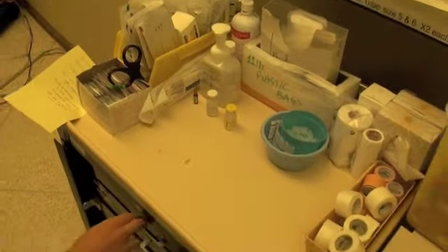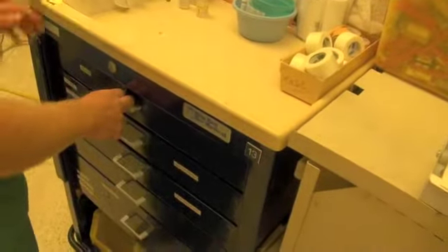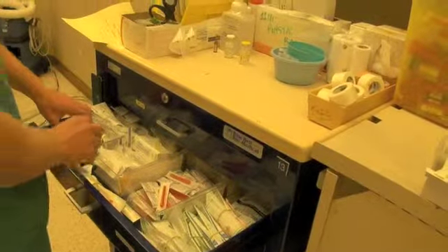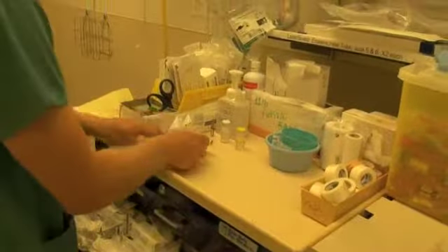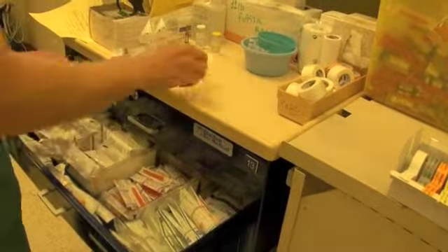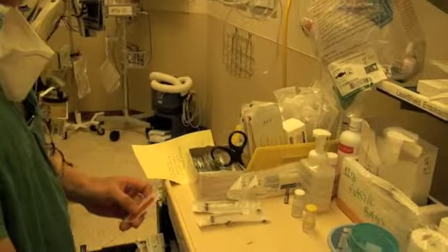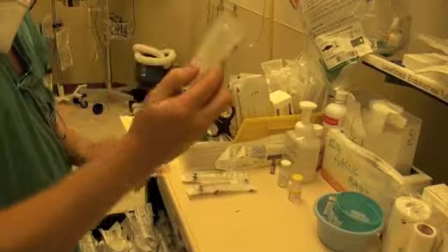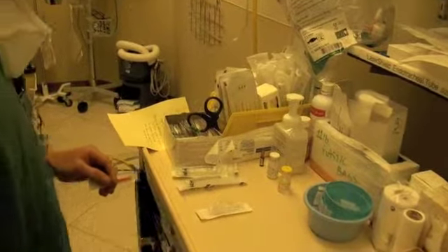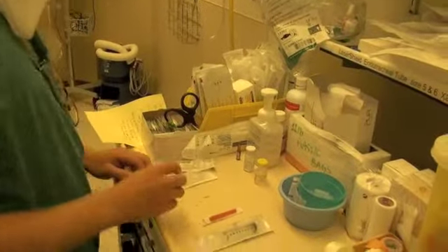So let's get started by getting together all our materials. So we've got our solutions and antibiotics there. Now we'll get some syringes. So a couple of 10 milliliter syringes. And we'll get needles. I'm going to be using the blunt-ended needle for the demonstration today, but note that there is also a safety needle which we can pull out and play with towards the end of the video. So we want to make sure that we are careful to maintain sterile technique.